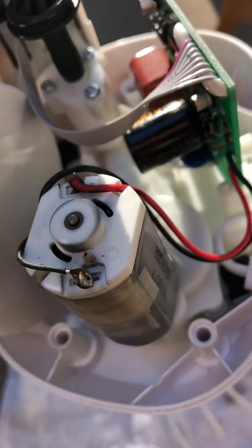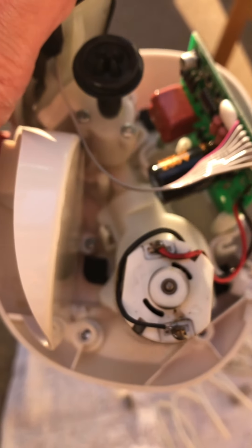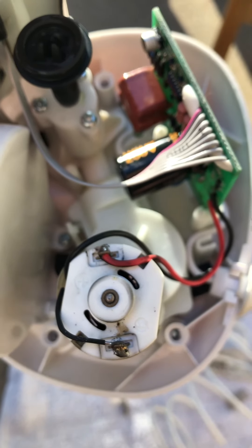I don't know what I'll save off of this, because I'm really not qualified to work on Waterpiks. But I'll probably save a couple of things for experimentation, like this hose here. I think I'm going to save this hose.